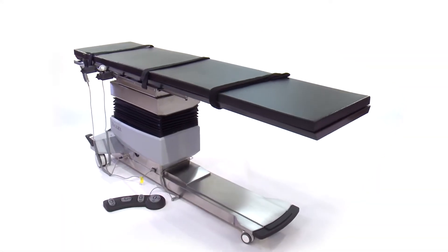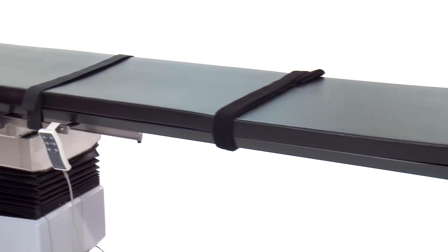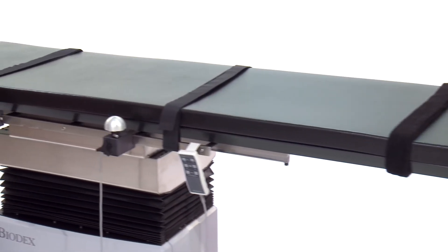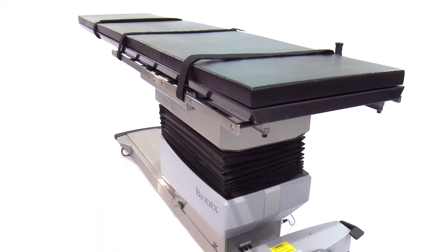Introducing the Biodex Surgical C-Arm Table 840, a cantilevered, low attenuation, carbon fiber tabletop that accommodates C-Arm positioning for image-guided fluoroscopic procedures.